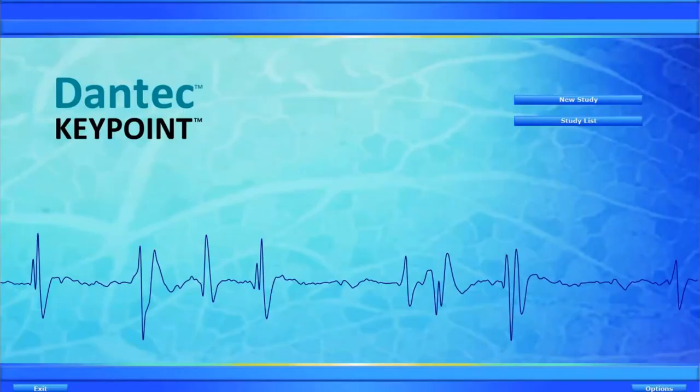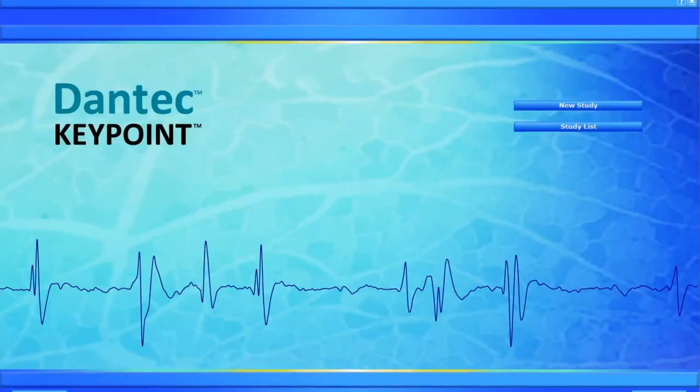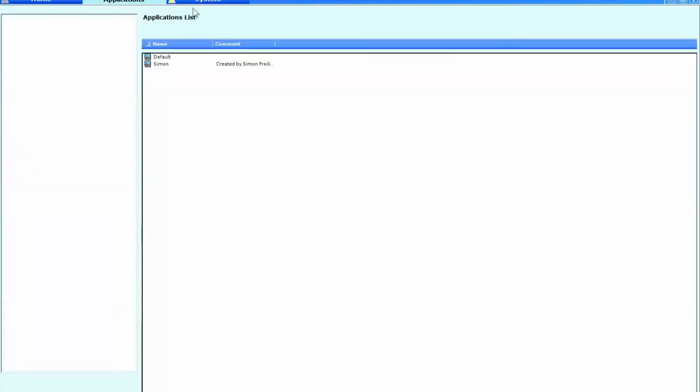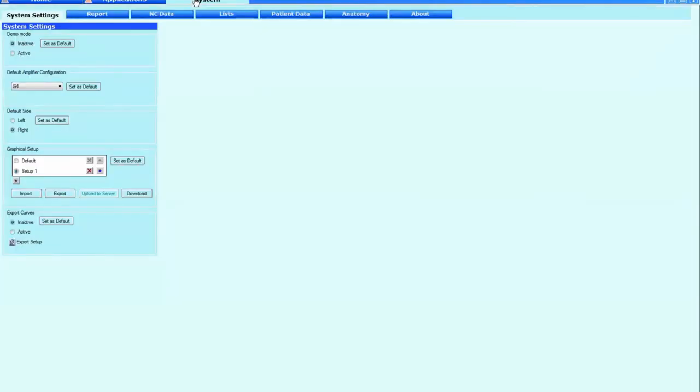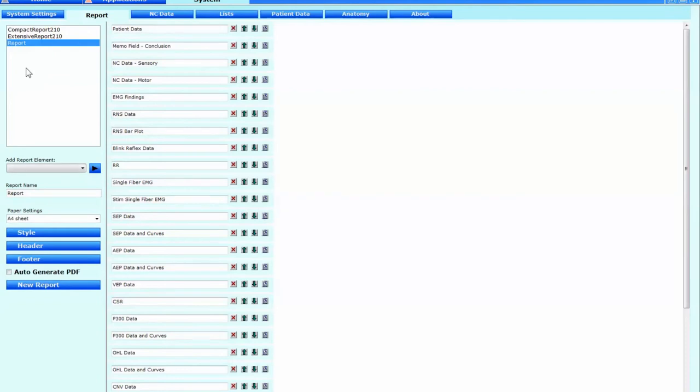The final part of this is to try and make sure that in the reports there is the least amount of typing necessary. So I'm going to show you how to now set up your report system to include this data and to manipulate the H data into looking like the cutaneous silent period. So here goes. So what you're going to be doing is you're going to go to your options and then you go to system on top and then you're going to select report. Then you choose your particular report program that you normally would use.